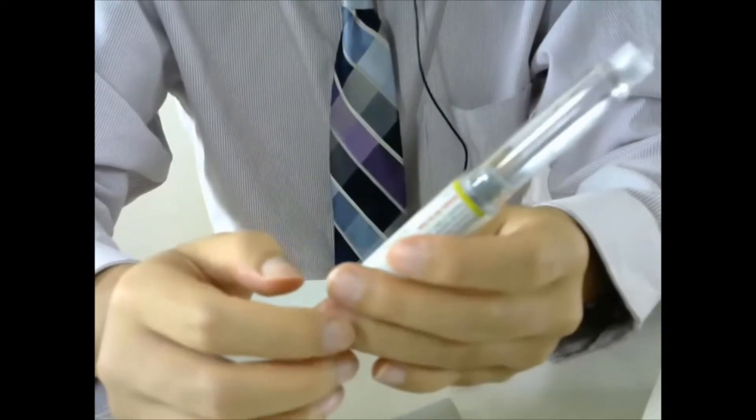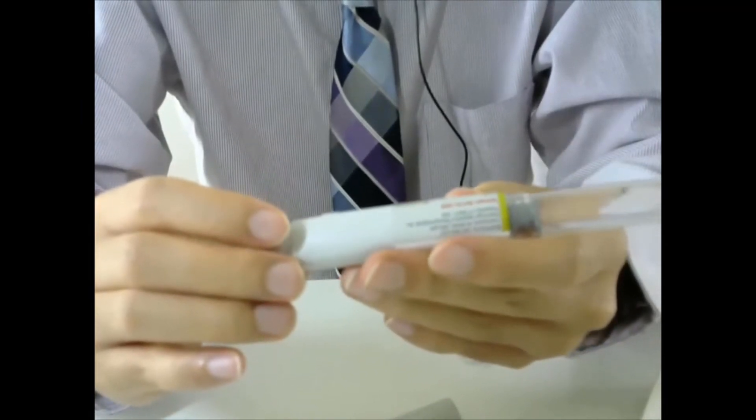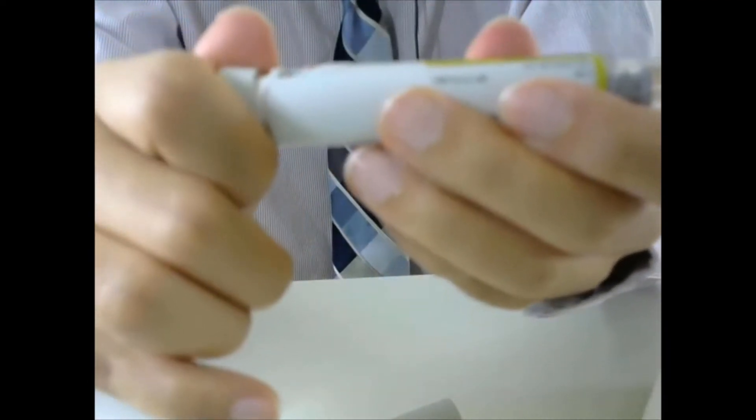And then we can dial to the units, the dose that you need. Let's say we are going to have 12 units. So dial to 12.